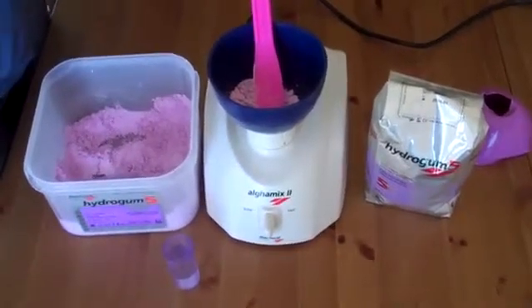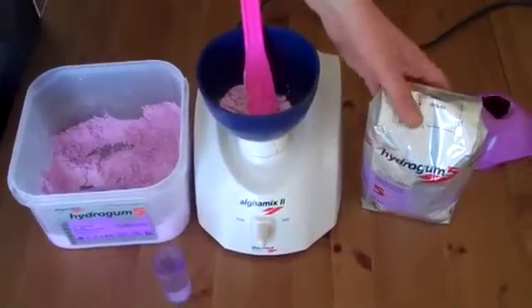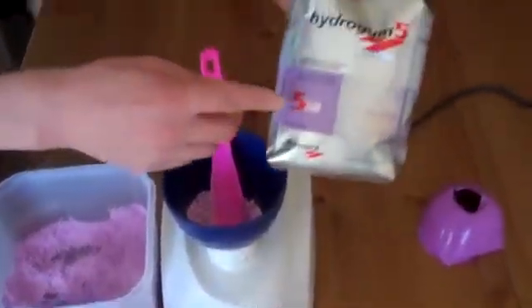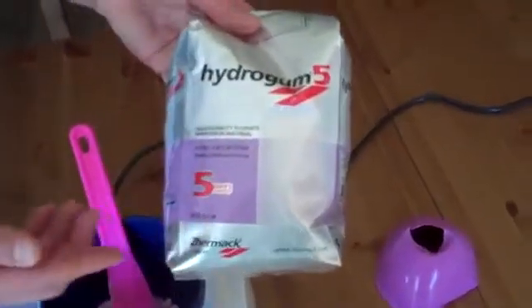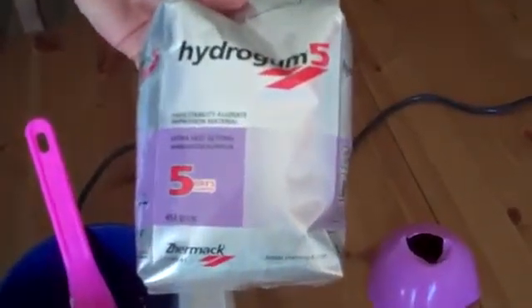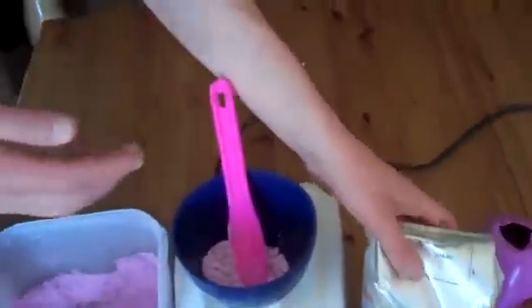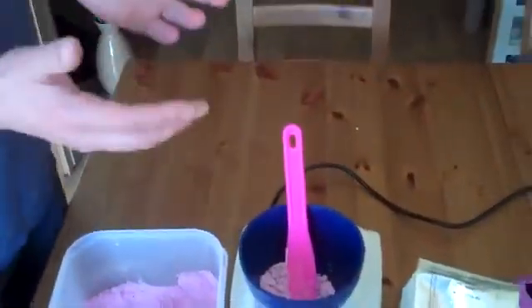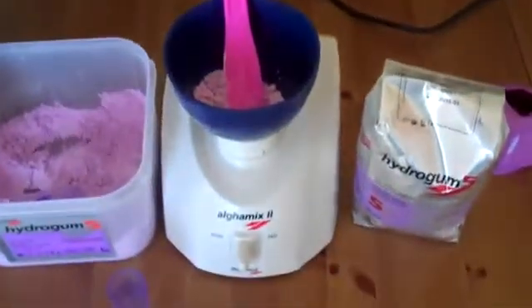There are a couple of ways to enhance your alginate impressions. One is to use a 5-day stability alginate, such as Hydrogum 5, so perfect for your postal or your Friday afternoon impressions. And another way to enhance any alginate is in the mixing itself, to get a really true bubble-free mix.